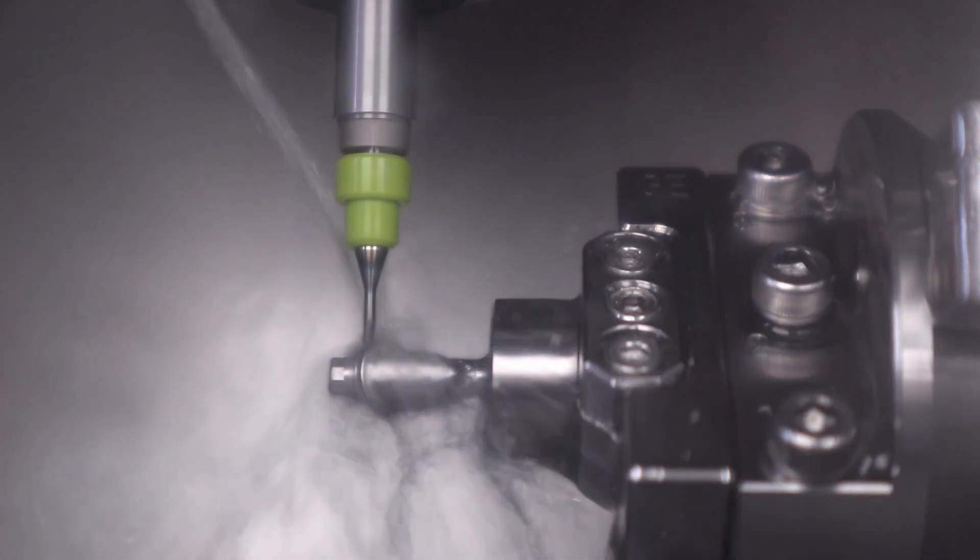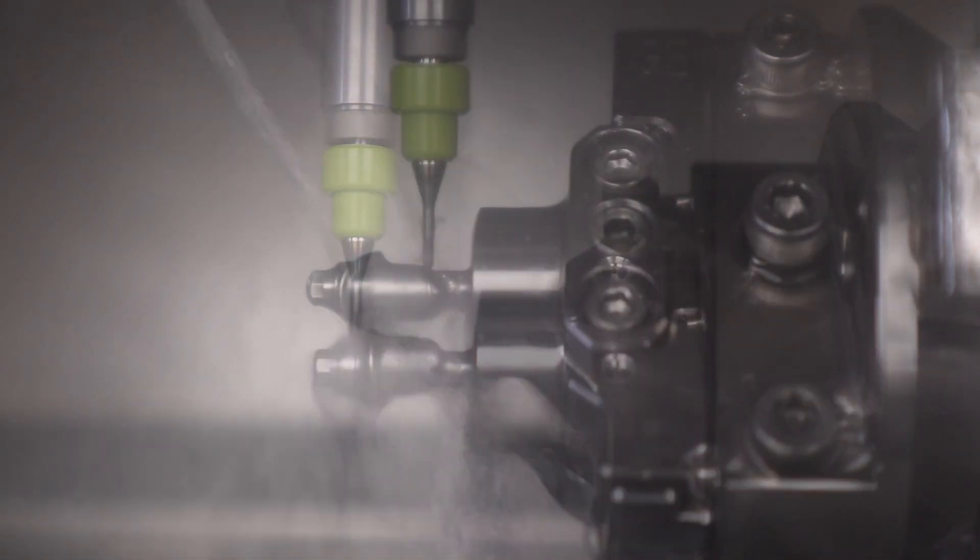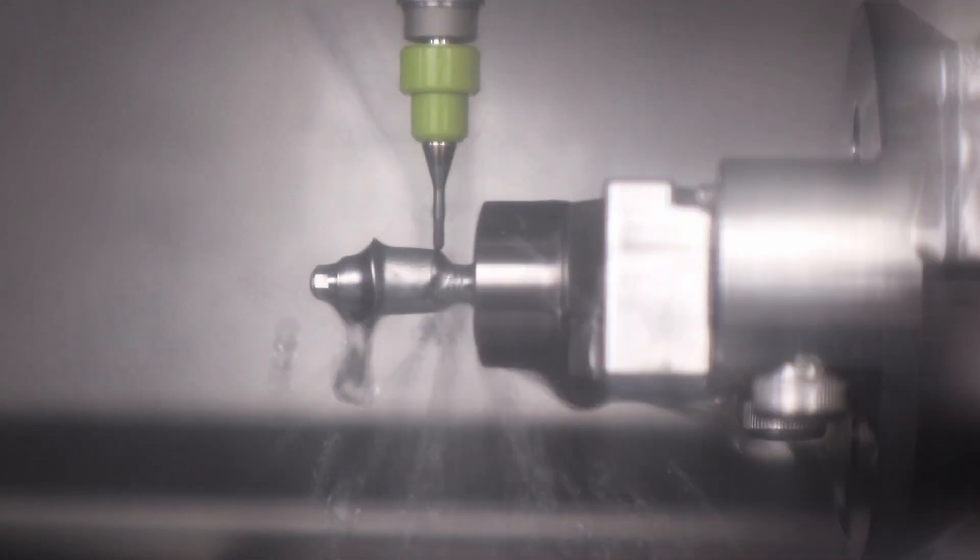And finally, the third burr is selected to complete the finer detail, and we start to see the polished abutment form emerge.